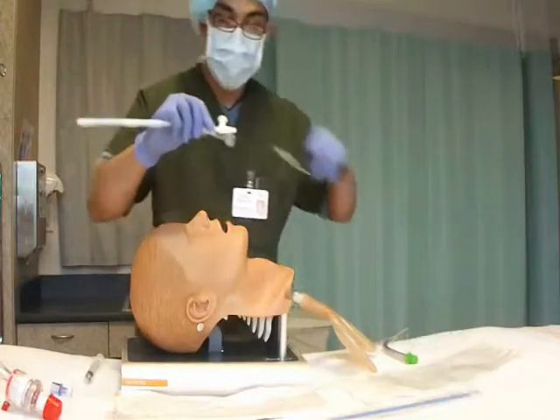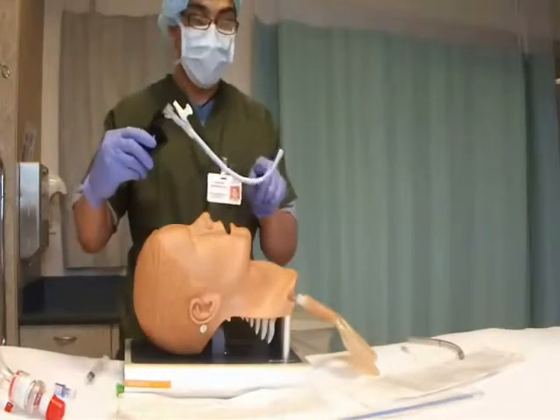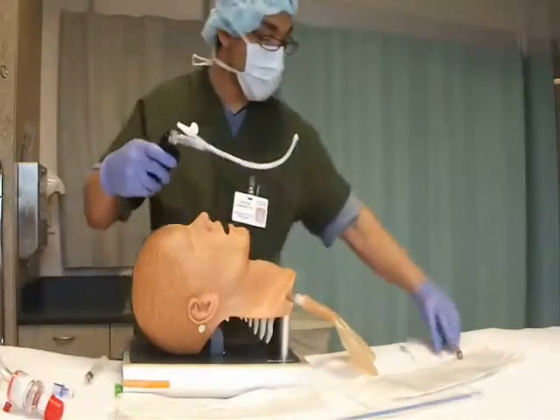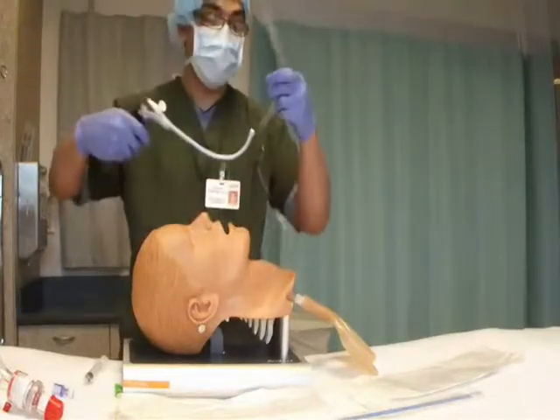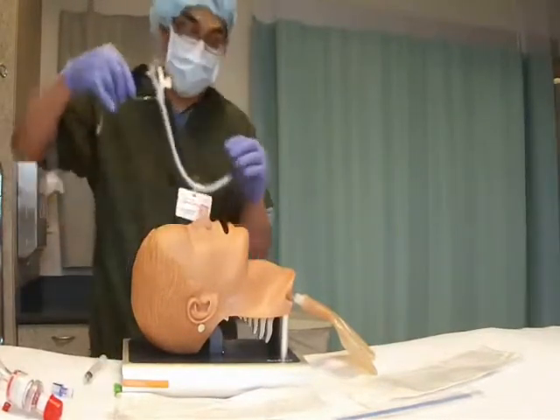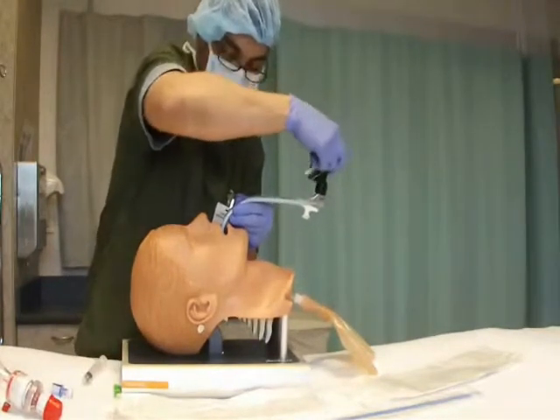First, place the multilumen endotracheal tube introducer on the shaft of the RFS. We can either attach the suction catheter and the oxygen catheter, or use it as standalone. After removing the 15mm adapter from the ET tube, place the ET tube on top. From this point onwards, the ET tube proceeds as normal.